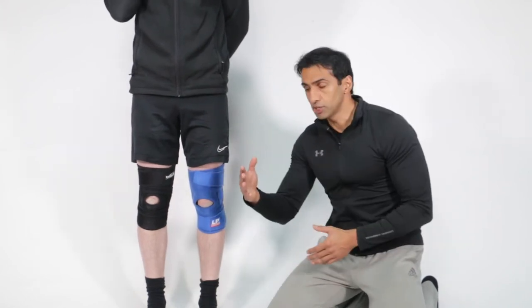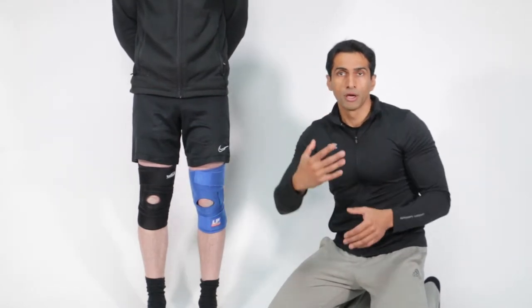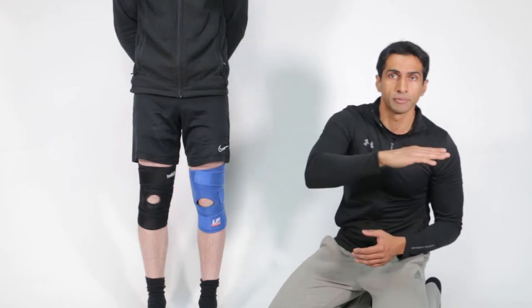The three-strap system is only using straps coming from one side, so by definition it's just not going to be as strong. If you were to hold a pillar or a column up with support from only one side, it's just going to tip over effectively.